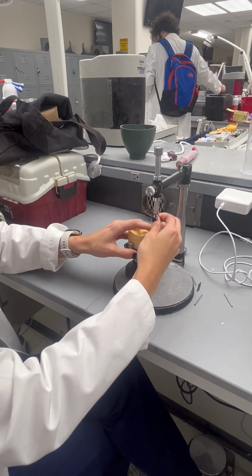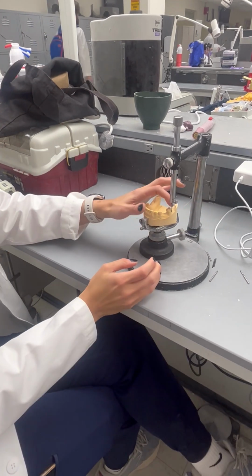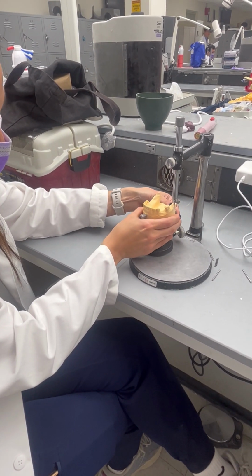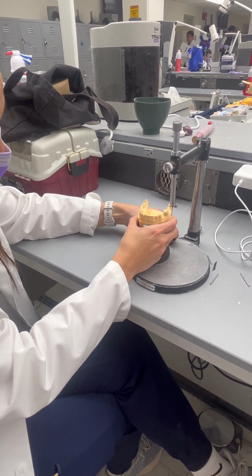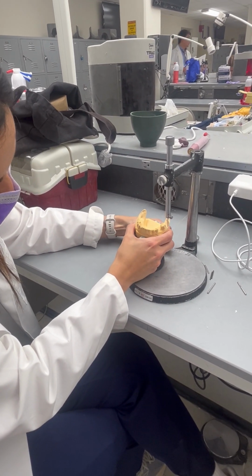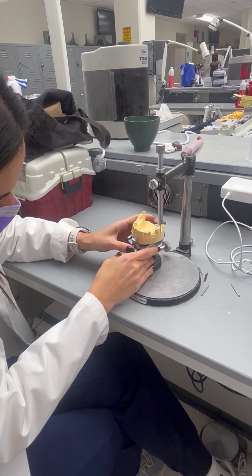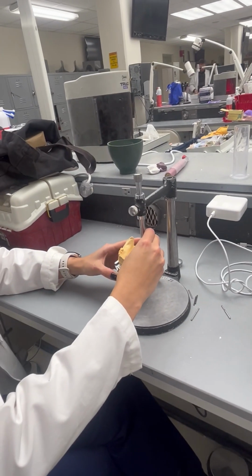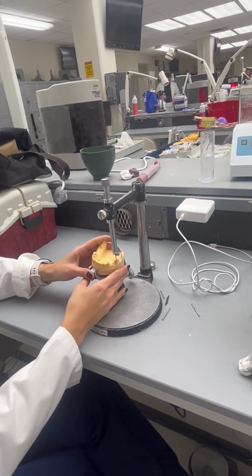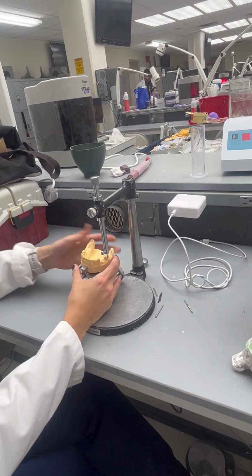The problem is that this tooth is very tilted lingually. So if we want an undercut in this area, we will need to modify the path, the POW. That's when you start tilting this, because I couldn't find anything in this area. So we need to have undercuts with a POW, and the POW has to be the same for all three teeth, all three abutment teeth. That's what you're looking for.